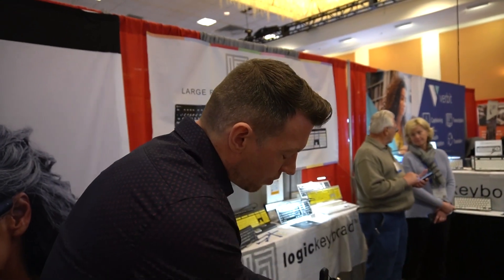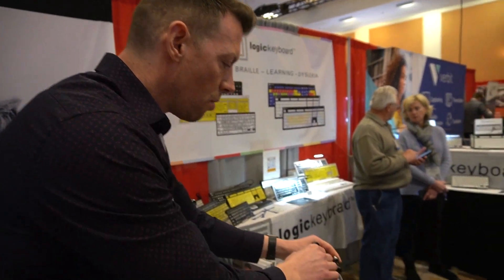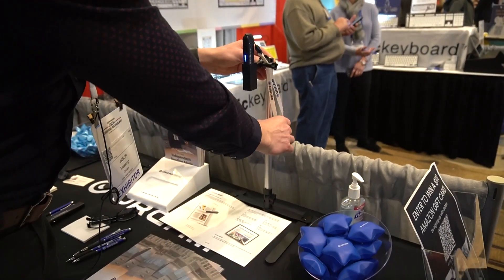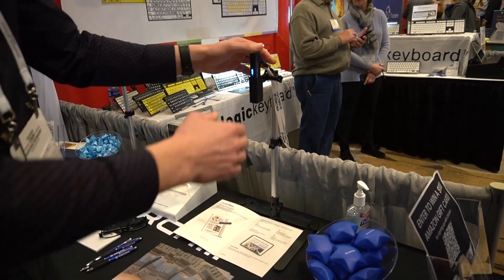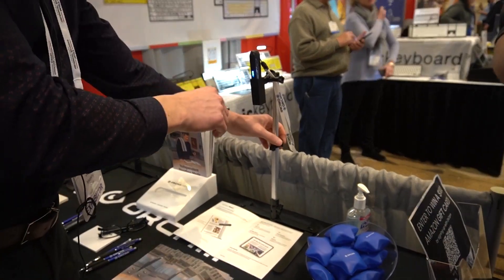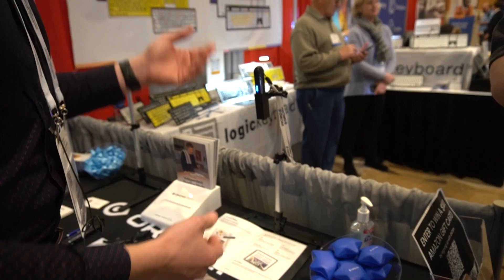I'm assuming that you're getting the full eight and a half by eleven sheet with the stand, so you're getting a full page scan. Yes, and you can also raise and lower the height of the stand. So if you have a smaller document you can lower the stand, and if you have a larger document you can raise the stand.